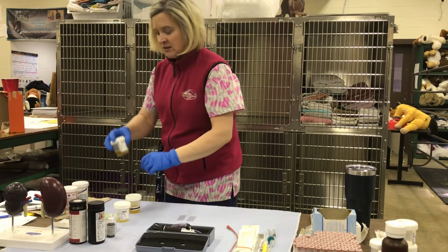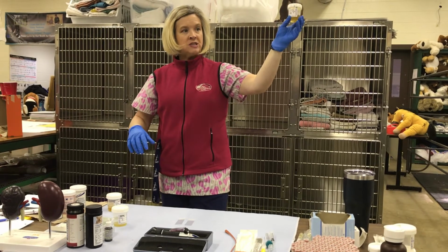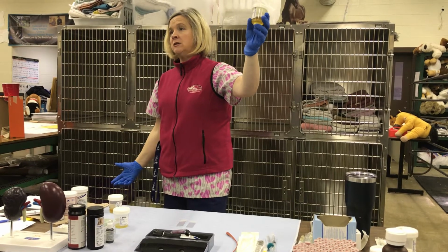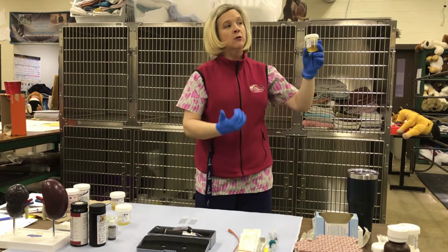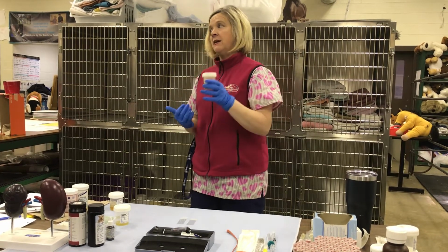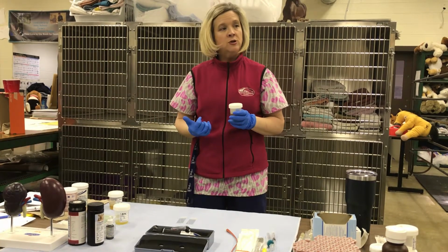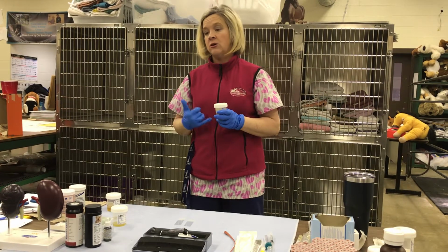So with that, I'm going to demonstrate with Corny's free catch sample, okay? Remember other ways that we can obtain a urine sample. If we need a sterile sample, we're going to collect that by cystocentesis. Or say it's a male dog and they will not urinate, we will do a urinary catheterization, and that's another way that we can get a sterile sample.